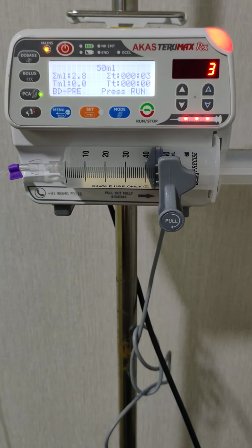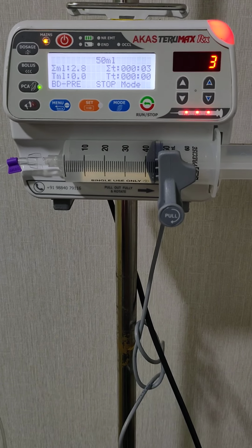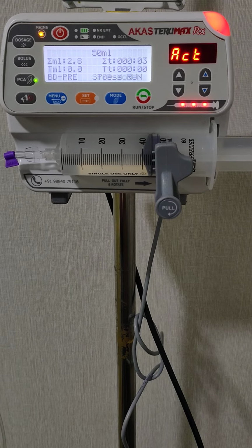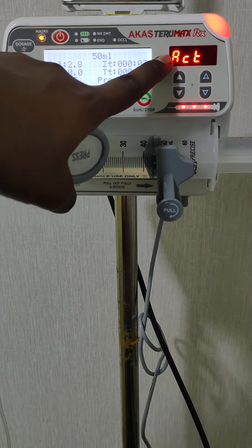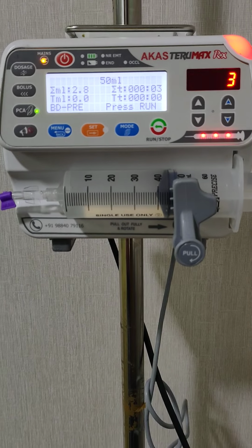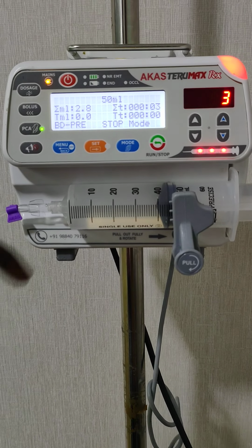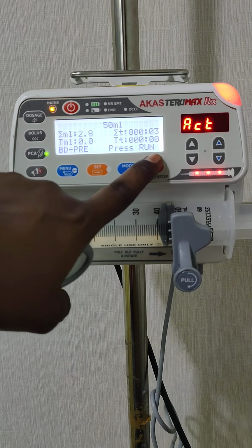Okay, in case the patient is demanding more, perhaps because a painkiller was induced, if a patient demands the painkiller again and again, we can adjust the time based on the ratio between presses and activations. If you have set a higher time, you can reduce the time. This is useful for the patient to use a PCA.